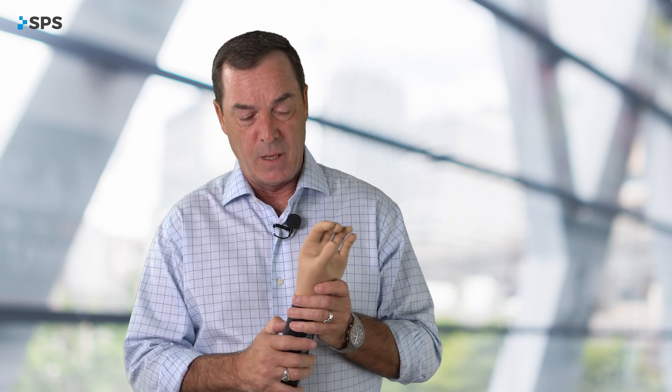There's a lot of other things we can do with the mode selector to really customize the hand for that patient. The Kinesi hand, when powered up, has a very smooth function. It has proportional speed and proportional grasp force. The maximum grip strength is 80 newtons.